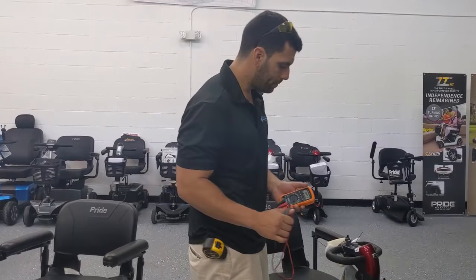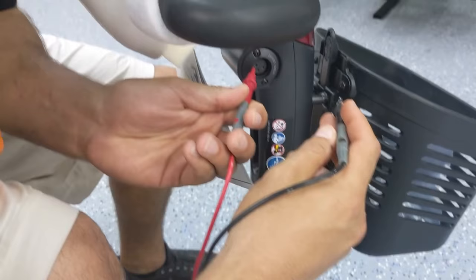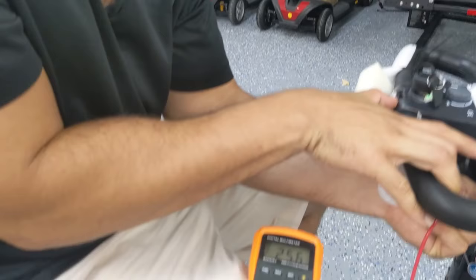If you want to really test your batteries — let's say they're reading a full load when you're not moving — that doesn't mean the batteries are good when you're actually moving and using power. From an electricity standpoint this is known as a load test, because when you're actually moving you draw more current than what the meter reads when you're standing still. It might take a little getting used to positioning the probes to get a steady reading.